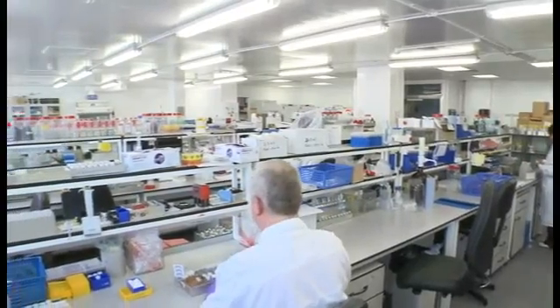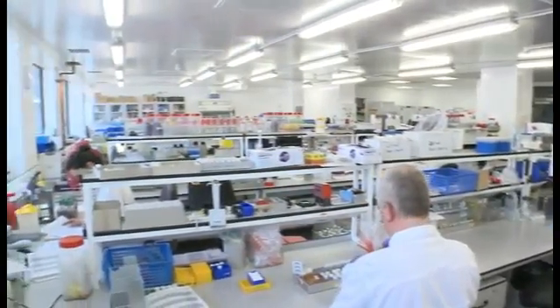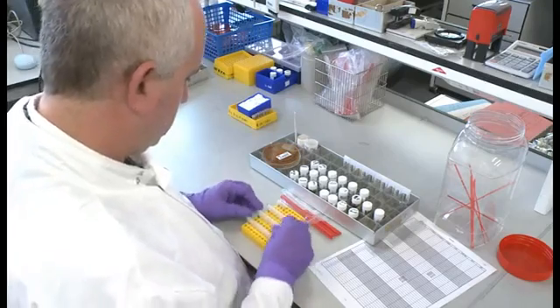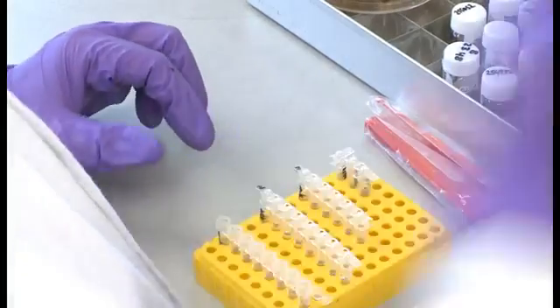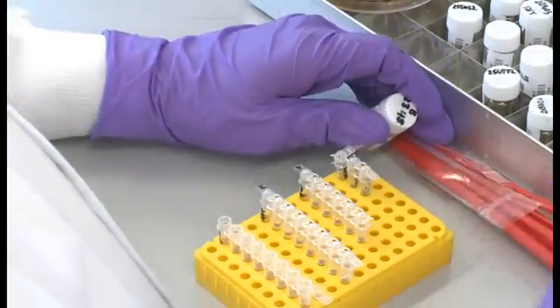We're in the Salmonella Reference Unit of the Gastro Lab at the Health Protection Agency. We're examining samples that we've received from hospital laboratories and maybe some food laboratories, and we're testing to see if these isolates are Salmonella.